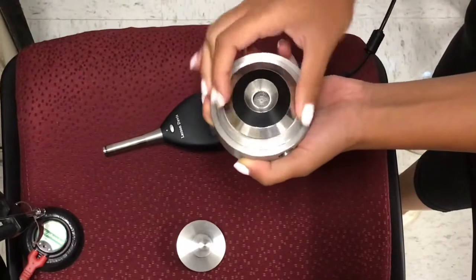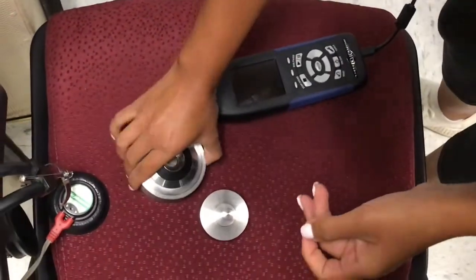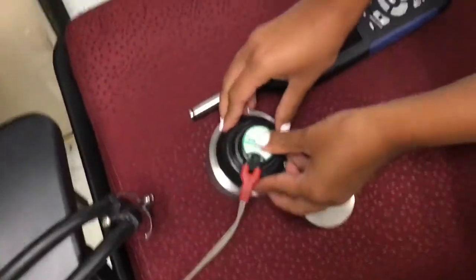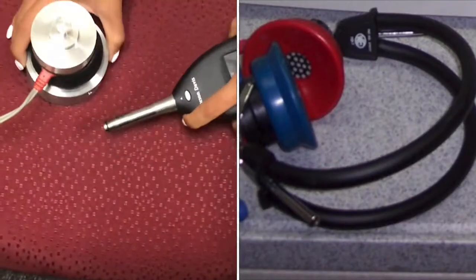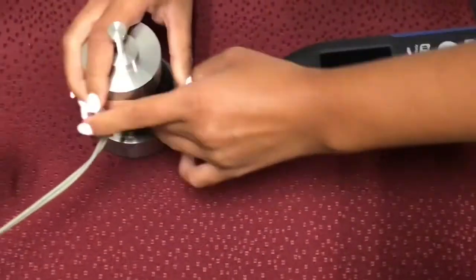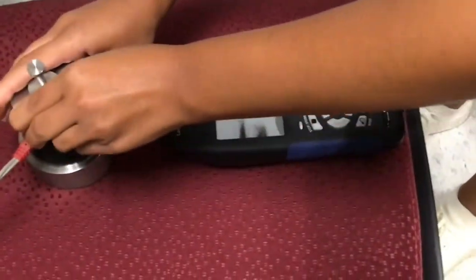This coupler is mimicking a human ear. What sits on top of this is the portion that I detached from the headphones. And what sits on top of that is the weight that is mimicking the force the headband part of the headphones applies on your ear when you wear it in the booth. And then you just stick the SLM inside. And that is your setup.